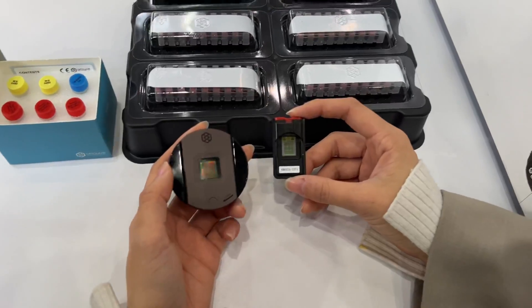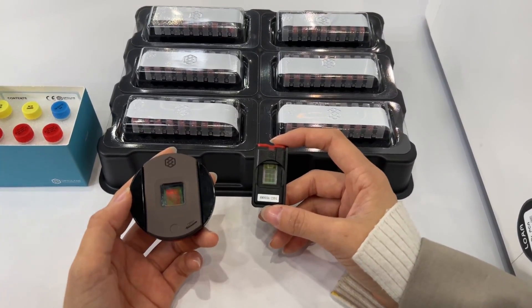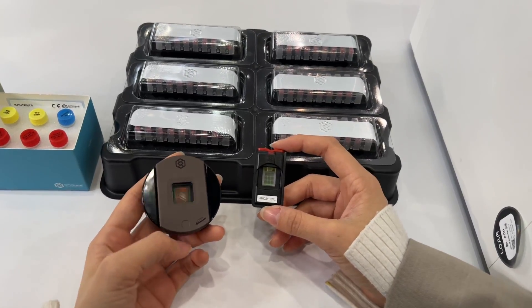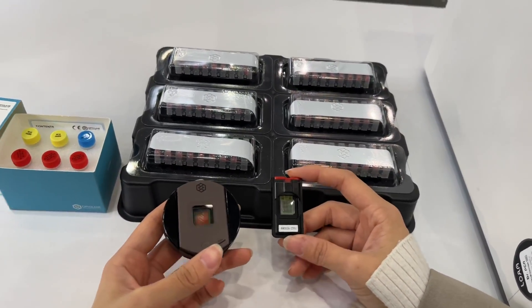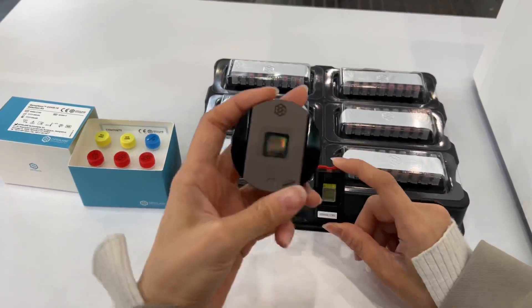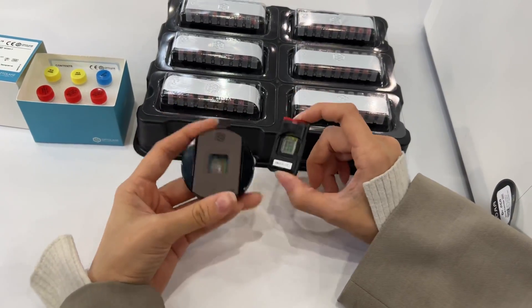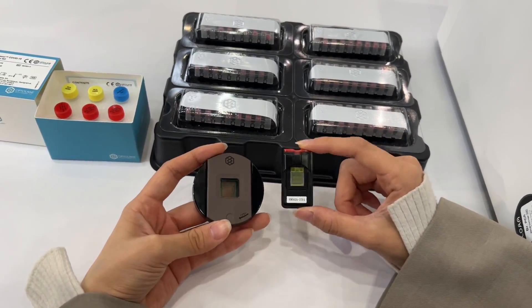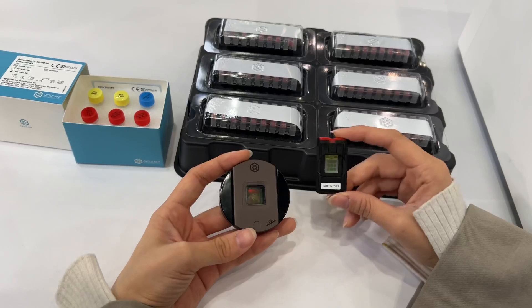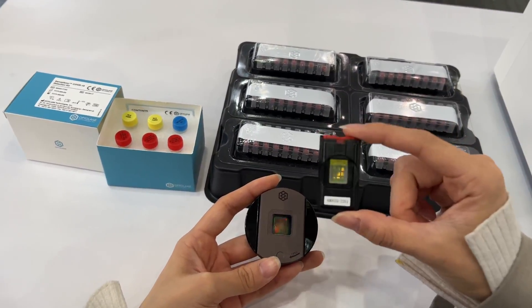This is one of our products called the Genoplexor COVID-19 Detection Kit. As you can see, it is composed of the reagent and chip, and chip case. The chip case should be separately purchased, but I will introduce it together. We only have to replace the chip after the test.